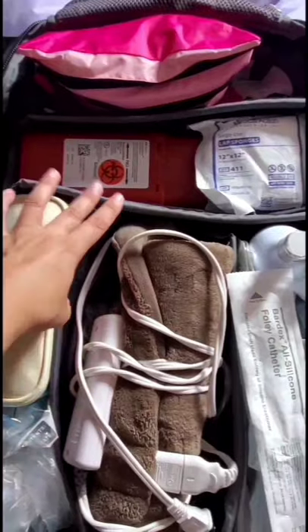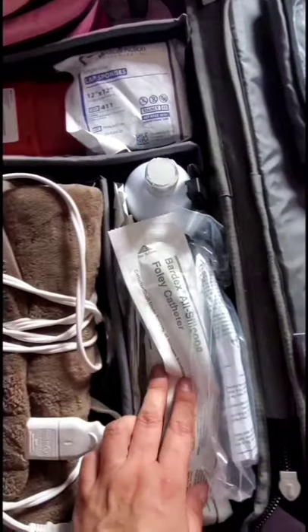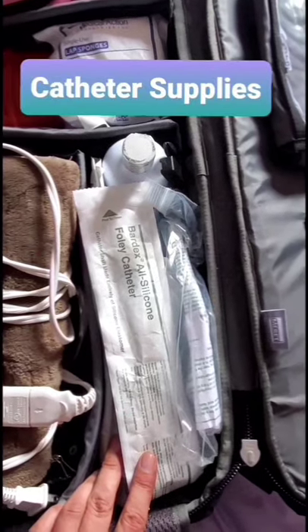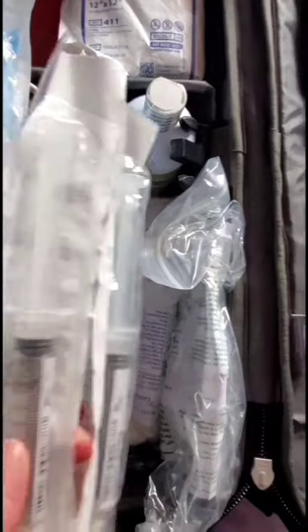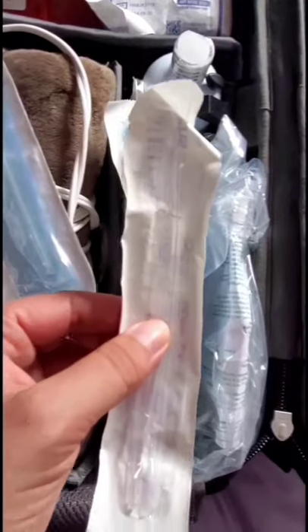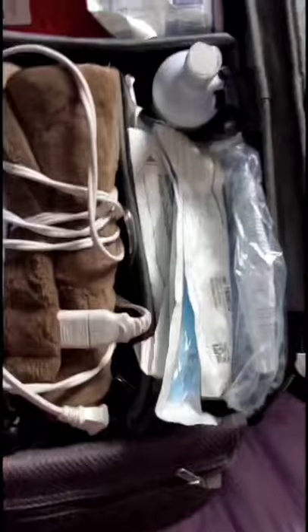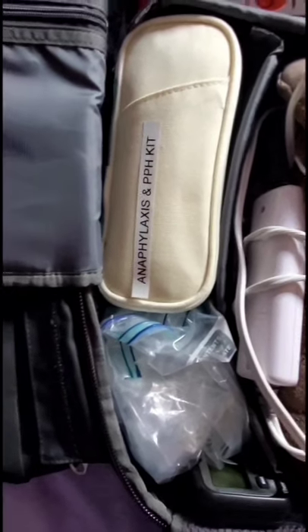The main part of my bag — it comes with even more dividers but I like mine organized this way. Off to the right I have everything I need for a catheter: my catheter tray down in the bottom, my Foley bag to the side, chlorhexidine, saline for my Foley catheter, Foley catheters, and these little tiny in-and-outs.